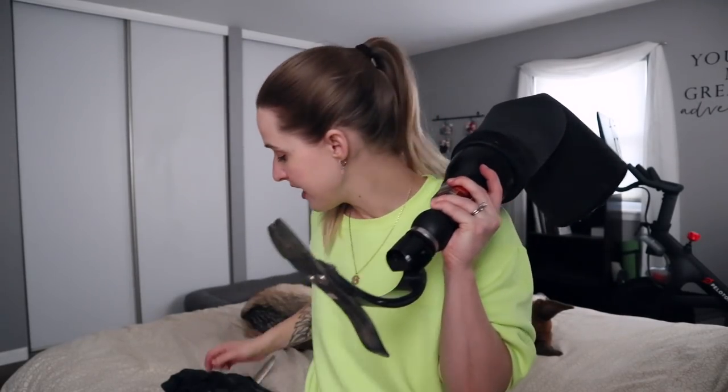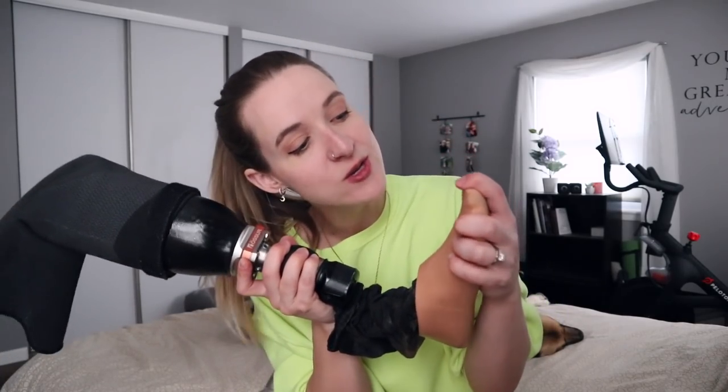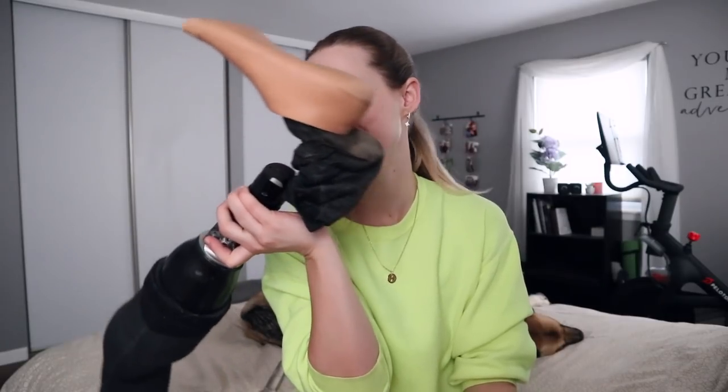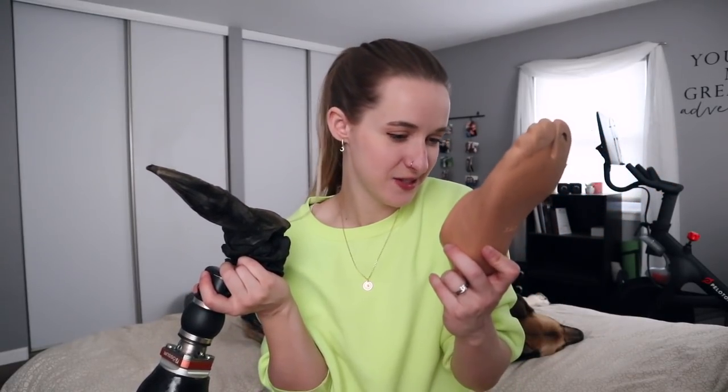I went to go put it back together and I could not get it back on. I could not get my foot back on. In what other context does that sentence even remotely make sense? So there I sat in my bathroom on the edge of tears — no, I just started laughing hysterically instead. Here's the problem: when I went to go put this back together, this split toe — it's really important that you get it on the split toe and I could not do that to save my life. Very important that we get the split toe on there. Take the foot, let's pop this back on here — even using this tool to try to grab it back on, I cannot get that toe to pop into the right place to line up with the split toe of my foot shell. So in desperation, I called my sweet prosthetics office and said, 'Help me, I've made many mistakes,' and they were kind enough to take pity on me and fit me in later today. So Zach and Tyler are going to assist me. I would feel really dumb going in for an appointment just to say I can't get my foot back on, but on top of that, I am still having the hissing and lack of suction issue, so it makes sense to go in for an appointment anyways.